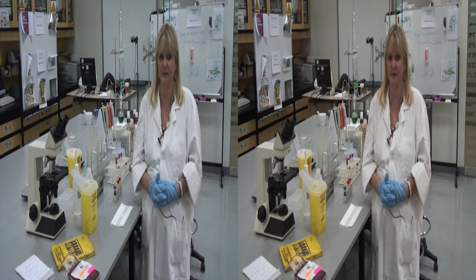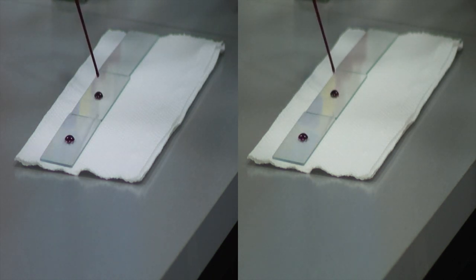In order to do a blood grouping, we make use of this information. I have with me a donor's blood that is about to be grouped. A drop of blood can be placed on a glass slide. One for anti-A, one for anti-B, and one for anti-A plus B.